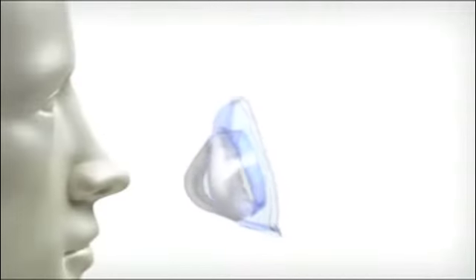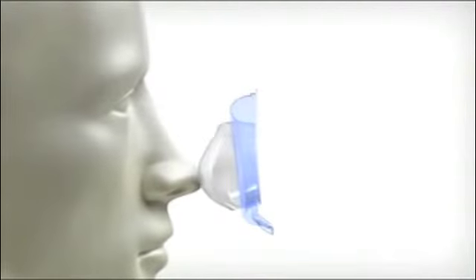When air pressure is supplied to the mask, the inner sealing cushion extends and attaches to the nose just before the mask's outer support cushion rests on the face. This attraction between the inner cushion and the nose creates a flexible, self-adjusting seal that adapts to movement and relaxed facial muscles when sleeping.